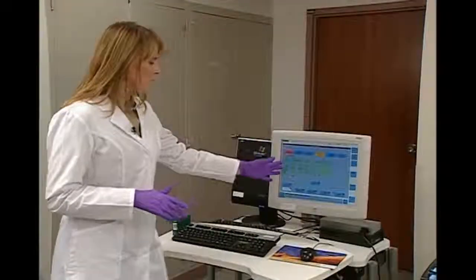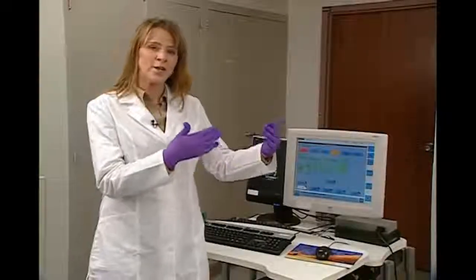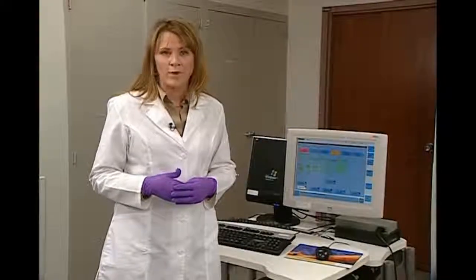So as you can see, when we come back to the system overview screen, our purple alarms are gone, which means that we've given the instrument enough reagent to get through the next 24 hours.